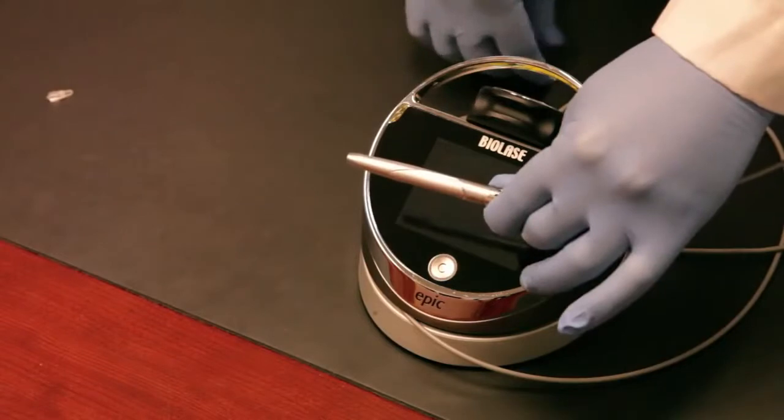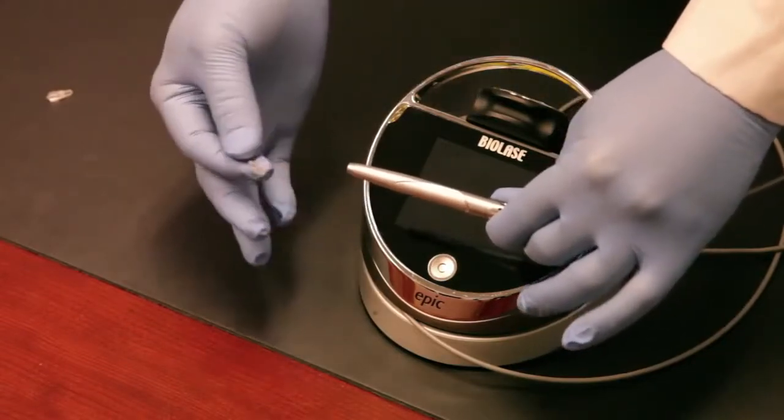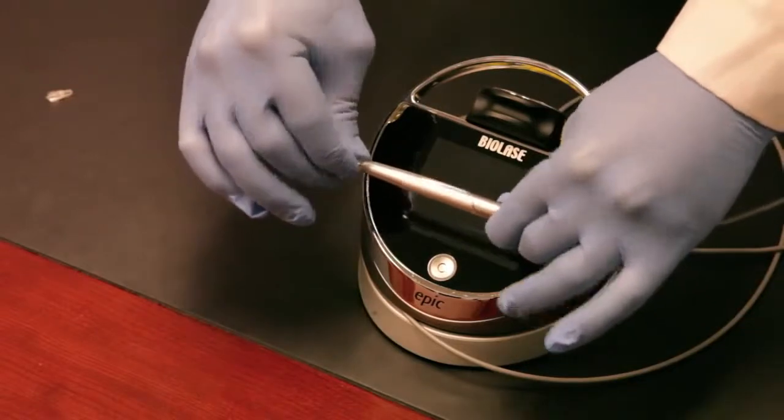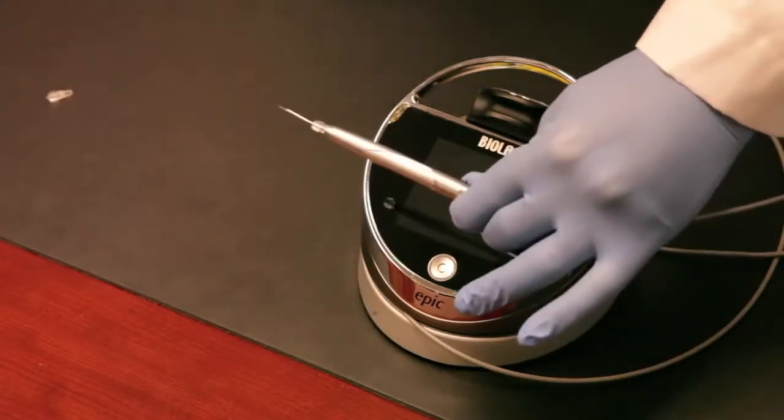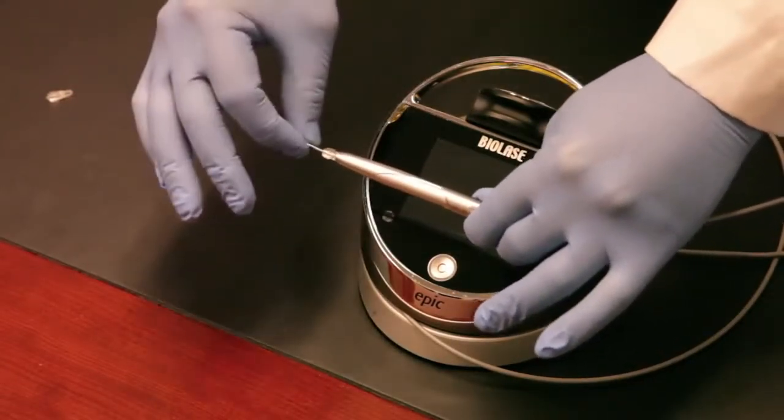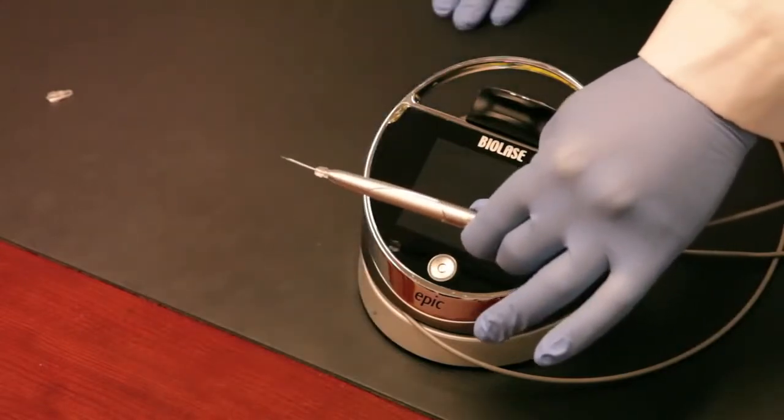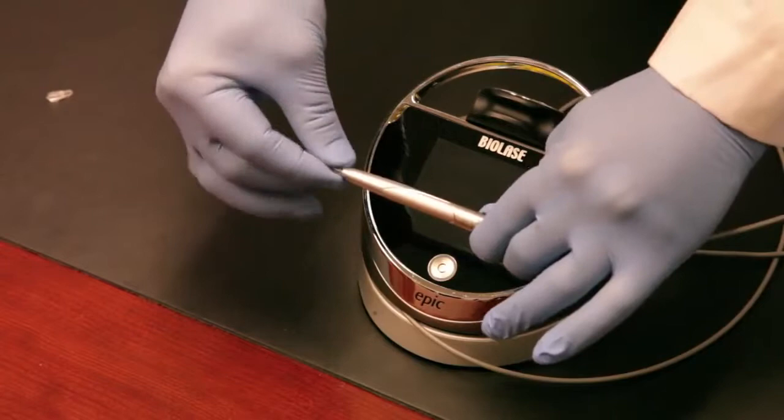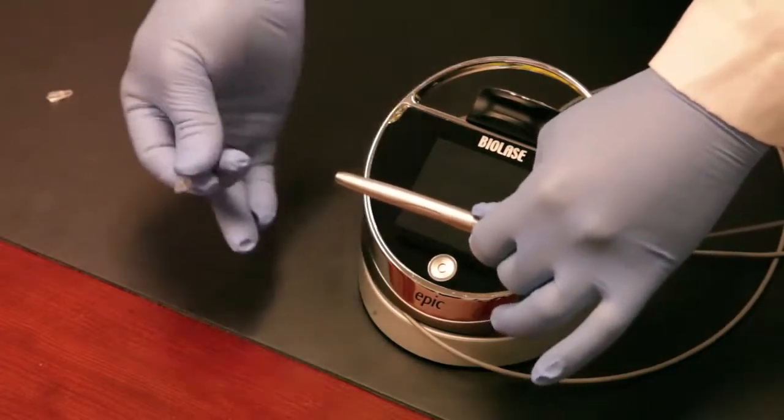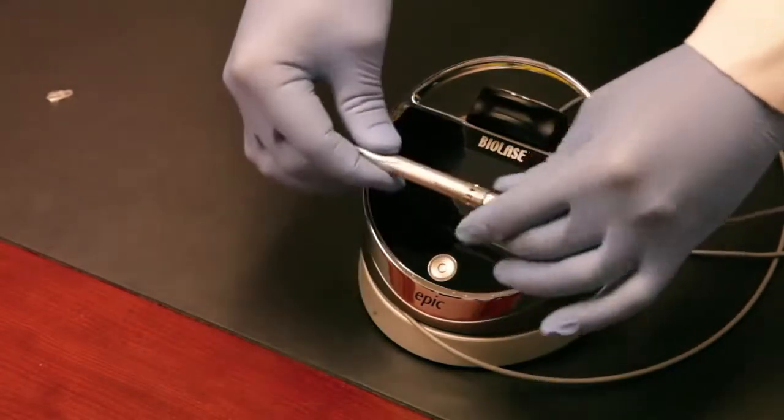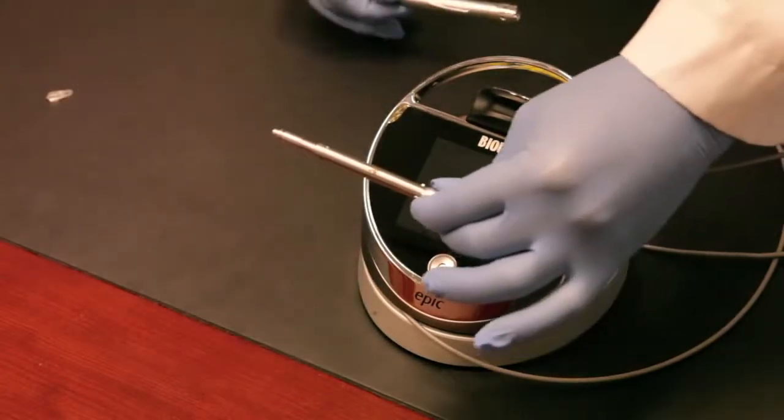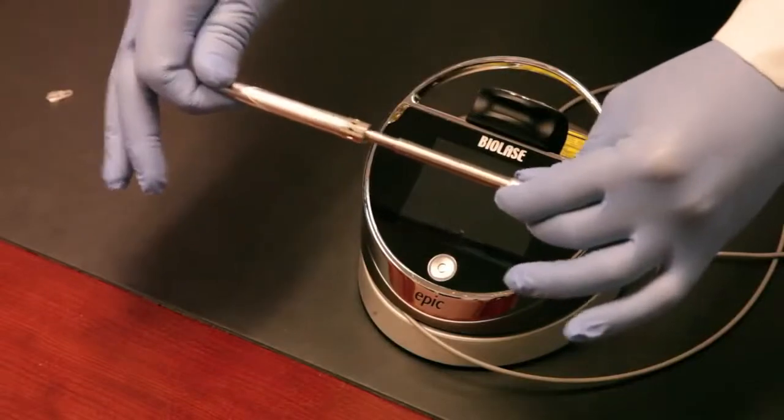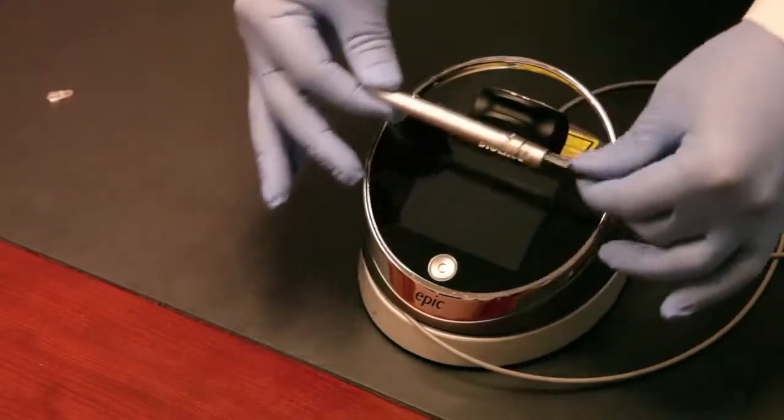Let's remove the plug from the end of the handpiece. It ships with this little plug. Using the plastic disposable tip here, we'll just apply a little pressure, turn it clockwise and the tip is installed and ready for use. It's that simple. You can bend this if you need to get to difficult to reach posterior areas. When you're done, you unscrew it and throw it in the sharps container. This comes off, your assistant would wipe or put this in the autoclave, wipe this down, take the removable plastic cover off, wipe the laser down and that's your teardown. Really basic and easy to understand.